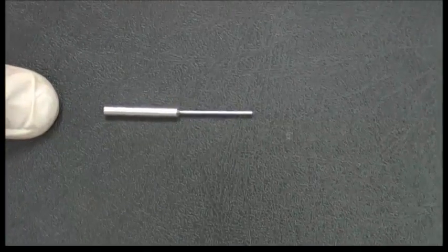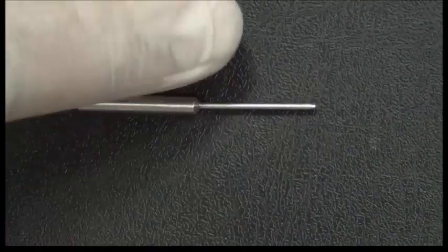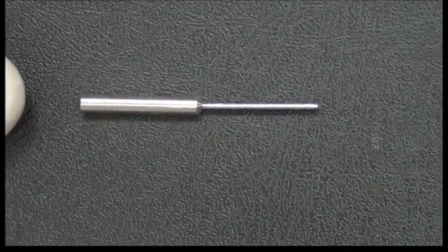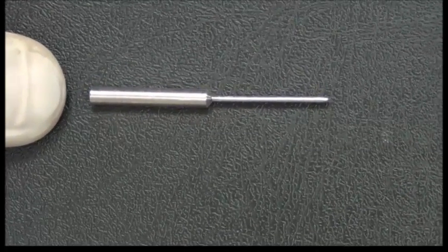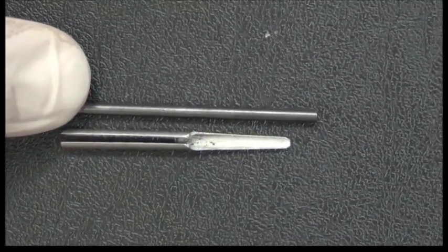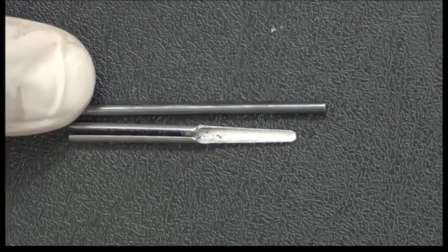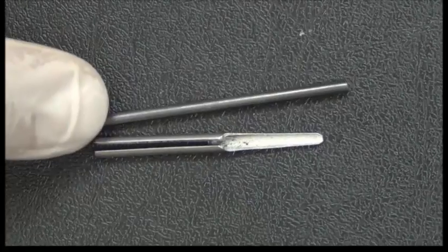First, we will begin with the analyzing rod. It is a metal shaft that has two parallel sides, and it's utilized to locate undercuts during cast analysis. The second instrument is the carbon marker. This carbon marker is used to draw on the cast, draw example survey lines.